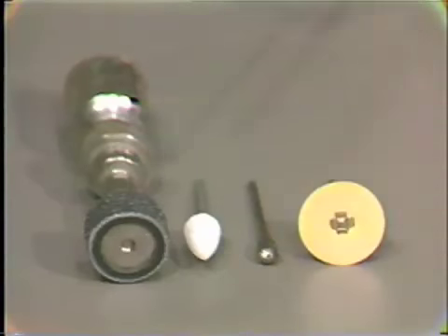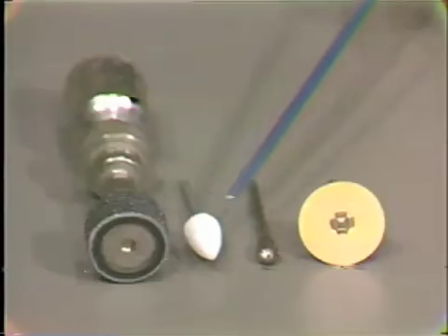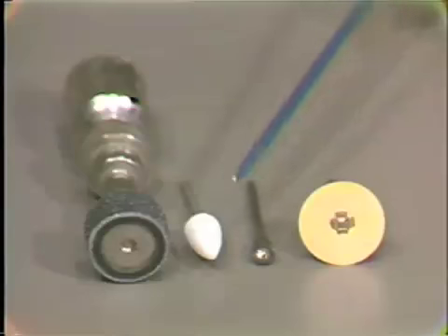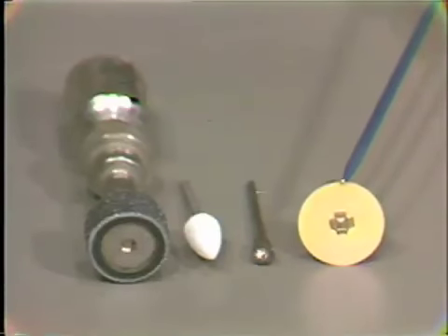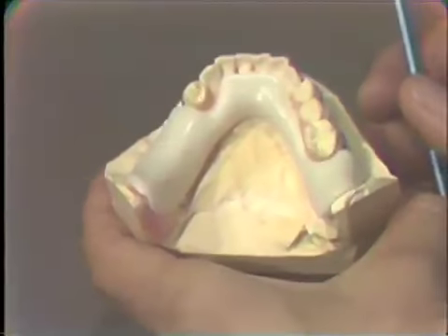You could use the arbor band to trim the excess acrylic, and for a little finer finishing we can use a fast cut stone or an acrylic burr or both, and then to take the burr off of the wire clasp so it's not injurious to the patient, we would probably use either this sandpaper disc or maybe a rubber wheel would work. But these are the instruments that we use to get it to this point.